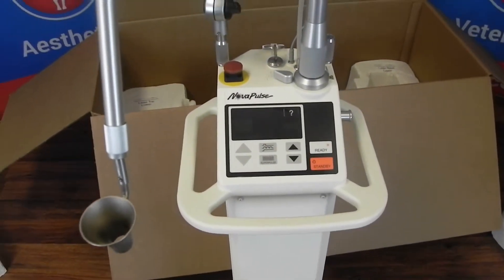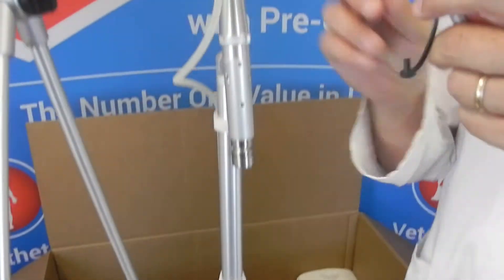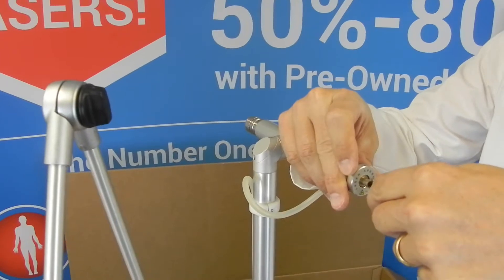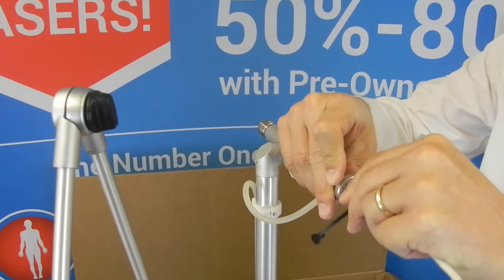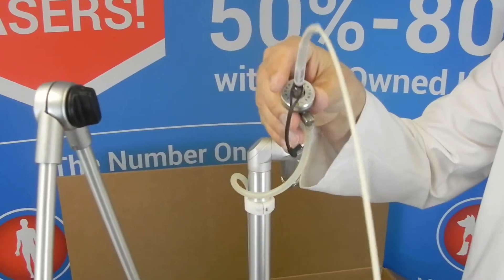Take your weight and reattach it. Take the cover off — this is pinned, it has a little slot here — so you just slide it in. It goes over those little locking pins and it's spring-loaded, so it connects just like that.